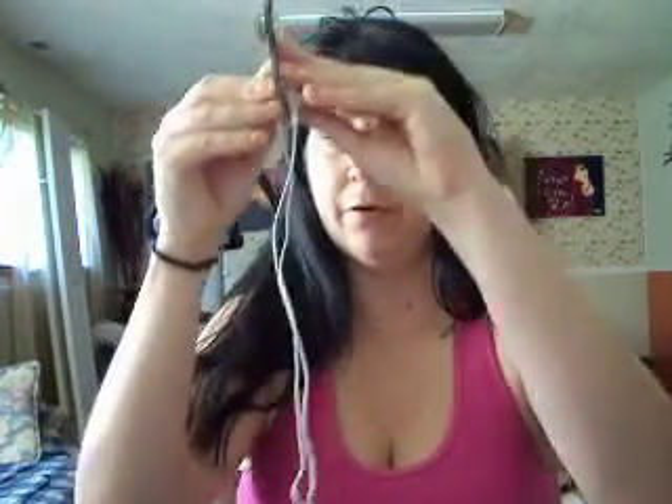I sent out a text about something else I use for pain. It's an XFT electrical stimulator — it's like what they do in physical therapy. You've got the pads that are hooked up to the machine, and it comes with this. I'll put a link because I bought this online.